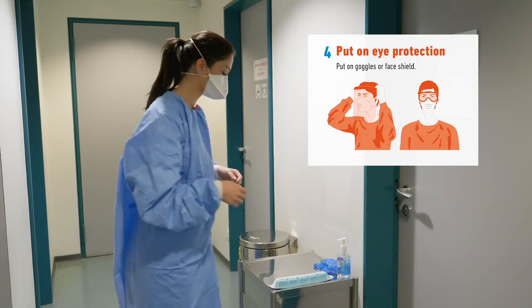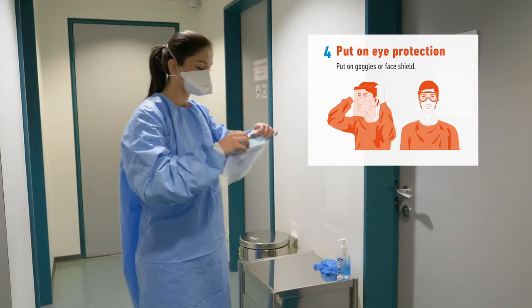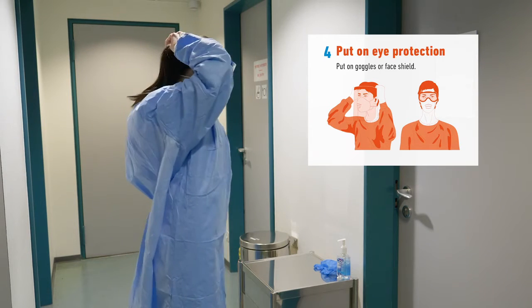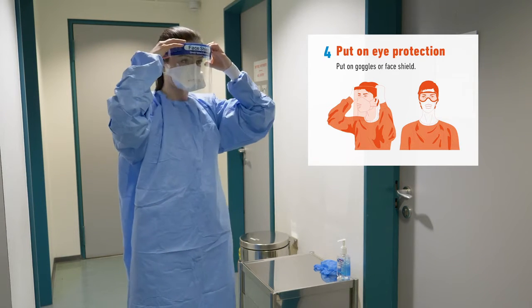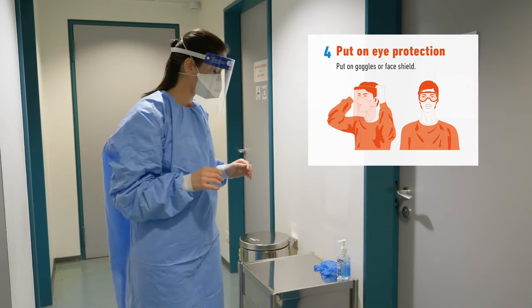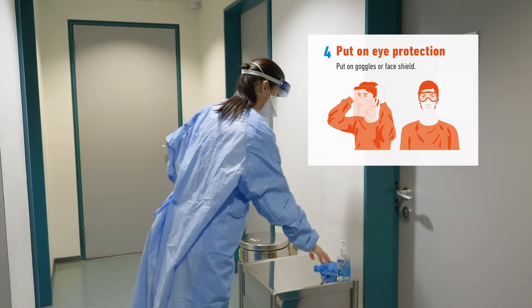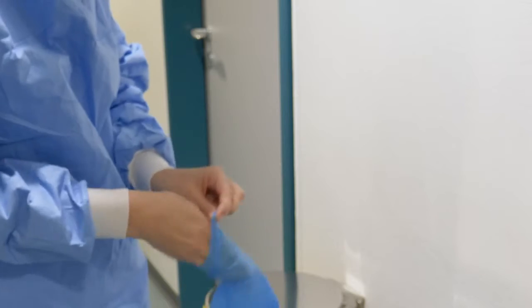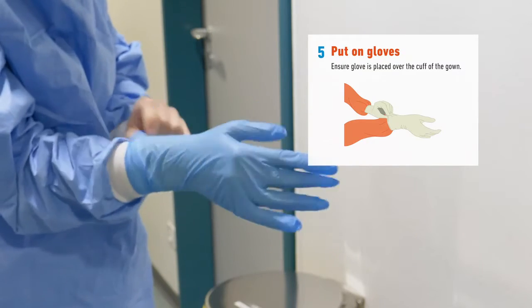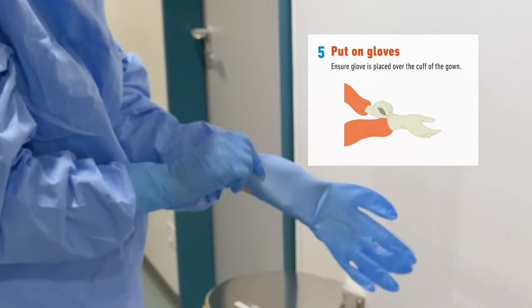Next, you are ready to put on the eye protection. This involves either goggles or a face shield, which can be placed over the mask with the top of the shield resting in the middle of your forehead. Finally, put on a pair of gloves and ensure they are placed over the cuff of the gown so that no skin is exposed.